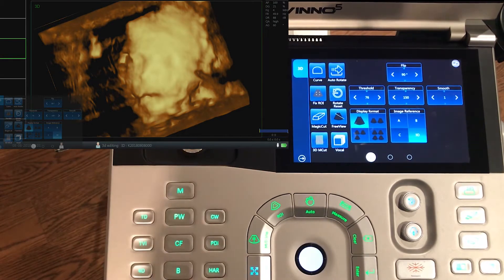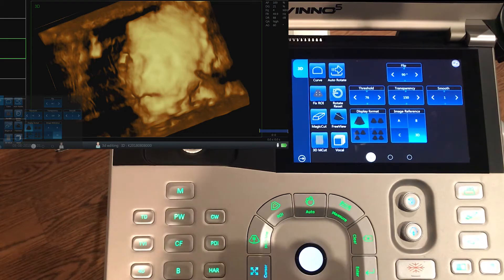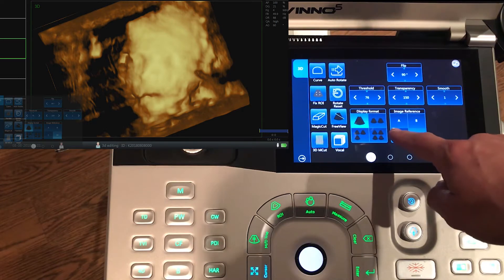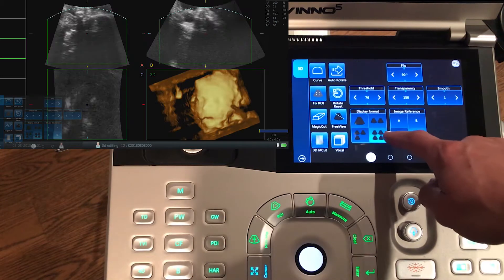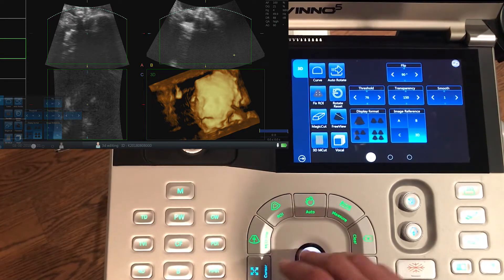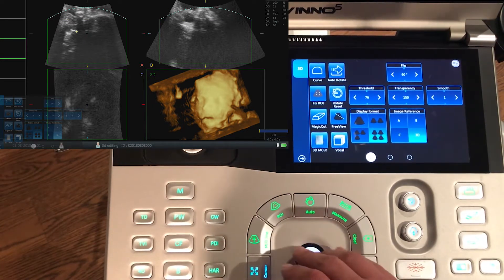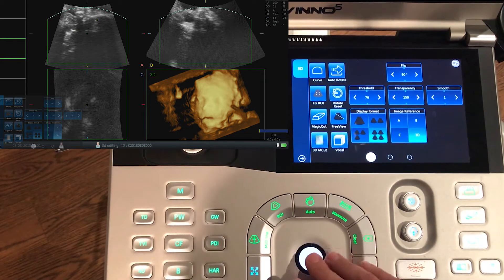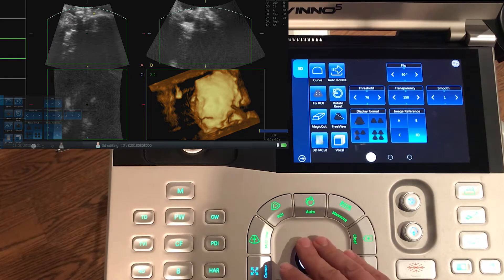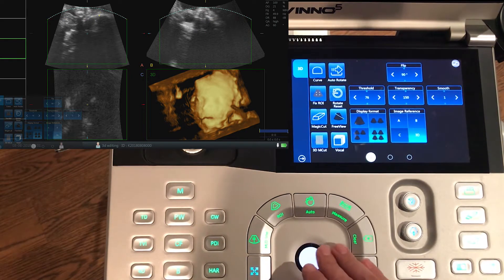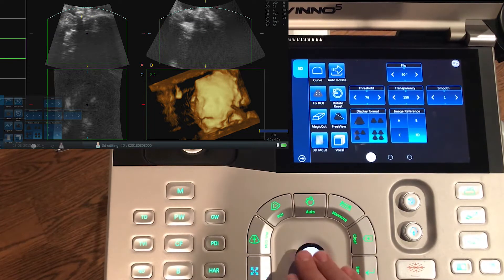The first thing I do when looking at a 3D image to see if we can improve it is to check the display format and bring up the 2D image. I click here to get my four screens up, and I can see straight away that this first image, which is where the 2D image would have been taken from, doesn't really look like a profile of the baby. Maybe that's the forehead there, and it looks like we might have something in the way just up here.